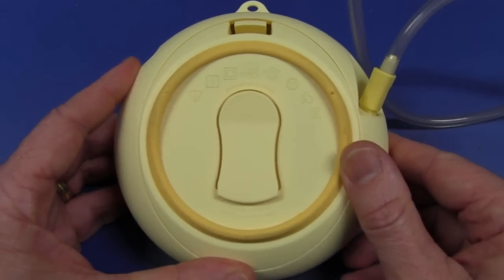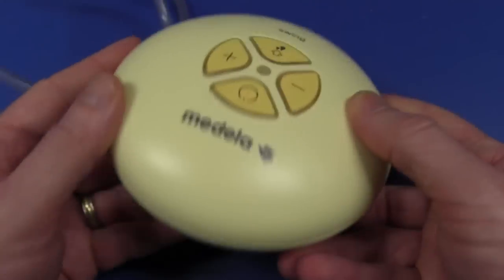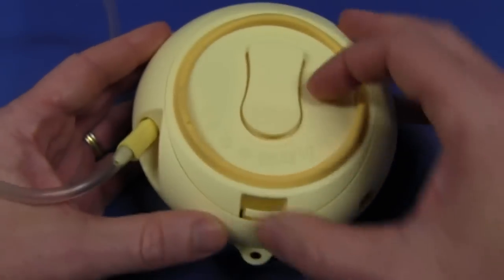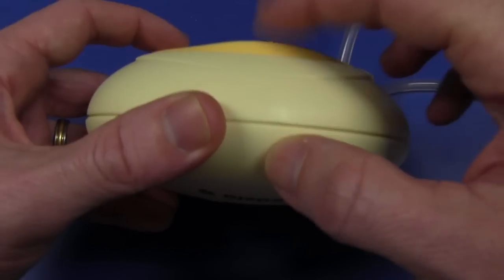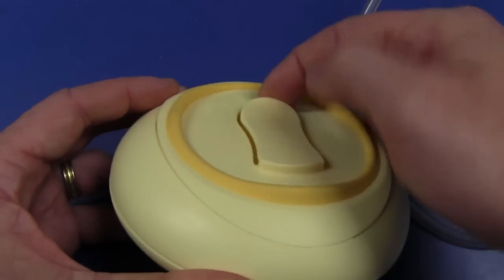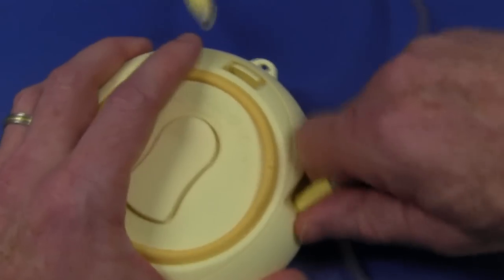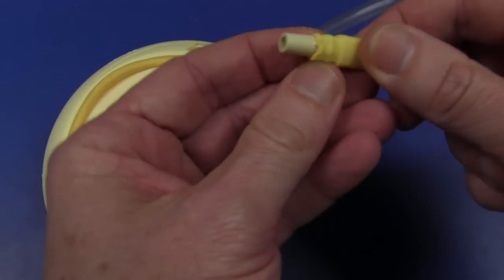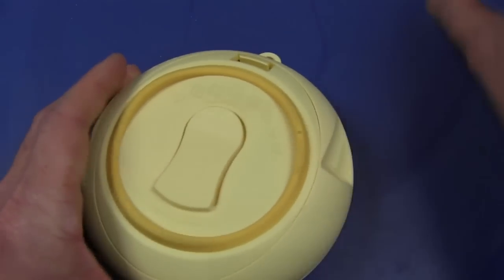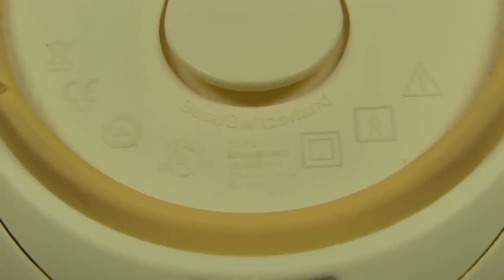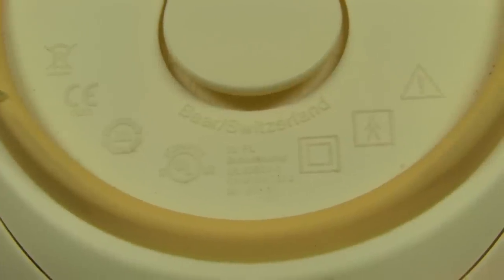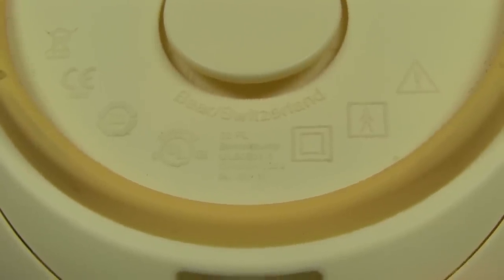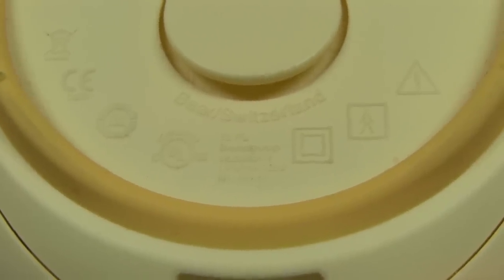And it's got four soft buttons here on the top, LED power up and down. And I'm not sure what that one does, no idea. Sorry, I don't go into the details of how this thing works. And it's a rather neat, rather neat little shape. And it actually contains the battery compartment here on the bottom. It's got a nice sort of three rubber feet on the bottom, molded in as one big circular ring like that. It's got a belt clip attachment, and this just comes out like that. So that's just a friction fit rubber hose there.